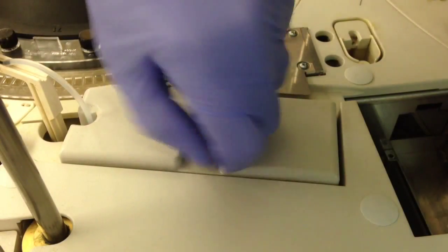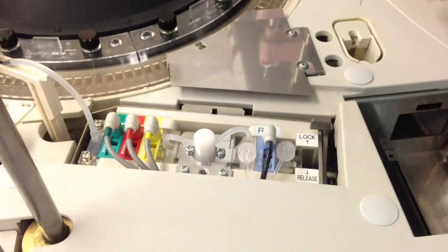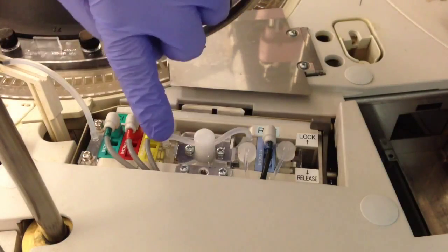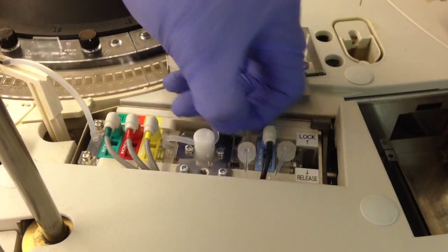After you put the system in standby, open up the 501 side and remove the ISE cover. This tube here for the pinch valve is what we're going to be replacing.